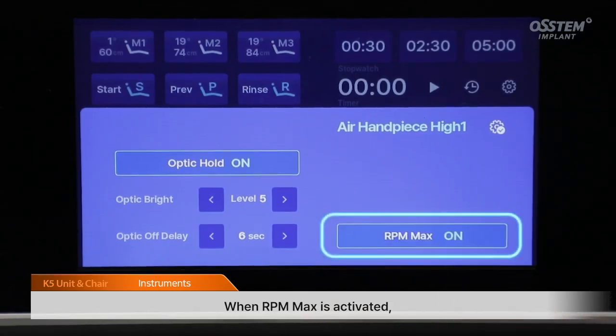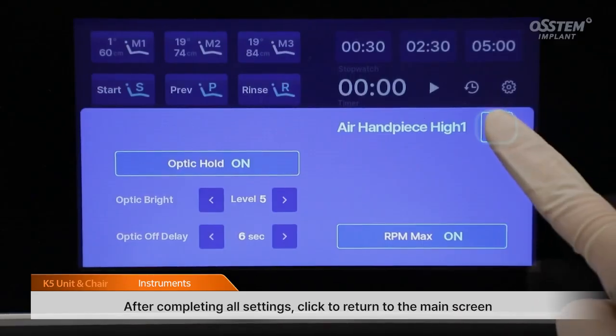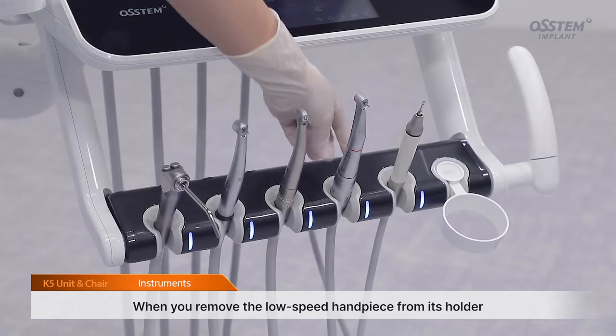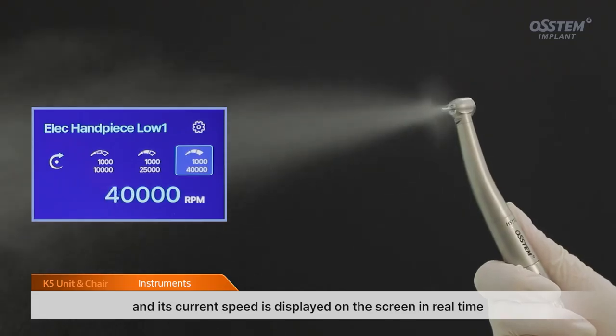When RPM max is activated, the handpiece runs at maximum RPM regardless of the pedal position. After completing all settings, click to return to the main screen. When you remove the low-speed handpiece from its holder and press the foot controller pedal, the handpiece starts operating, and its current speed is displayed on the screen in real time.